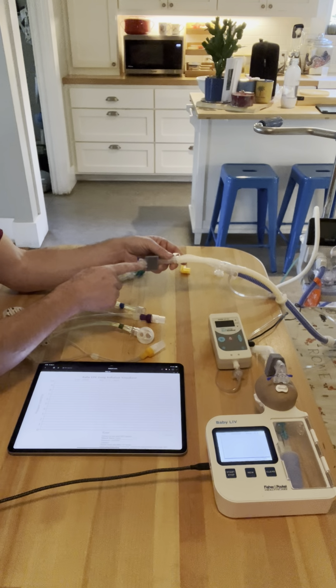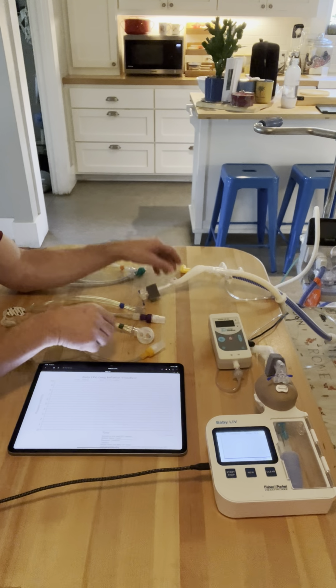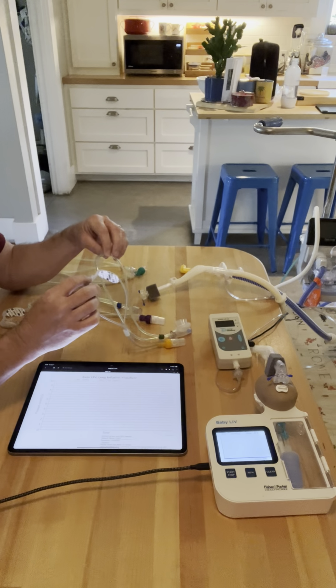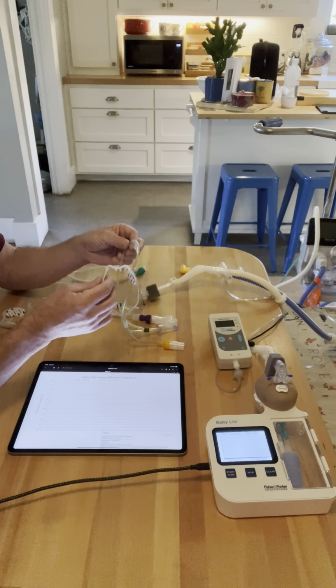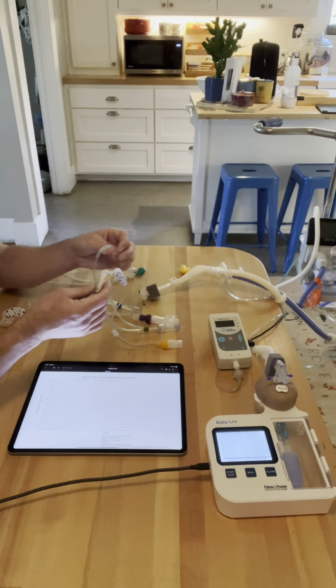Number two, it asks for 100% occlusion of the nares. So CPAP is a closed system. If you have any leak within the system, then you will have a reduction in your CPAP pressure. If you look at cannulas, they ask for high flow about 50 to 60%, and for those who recommend using it for CPAP, we'll say 60 to 80%.